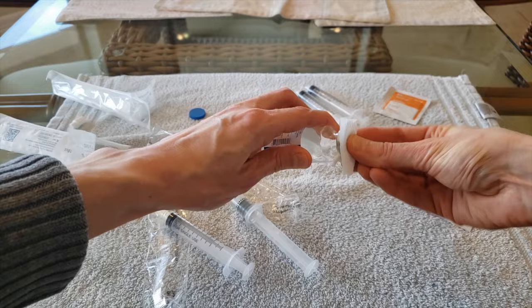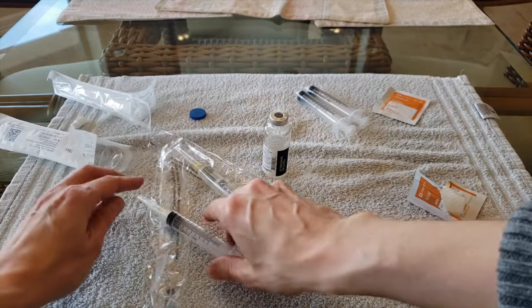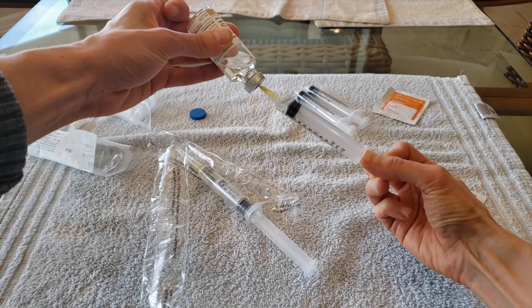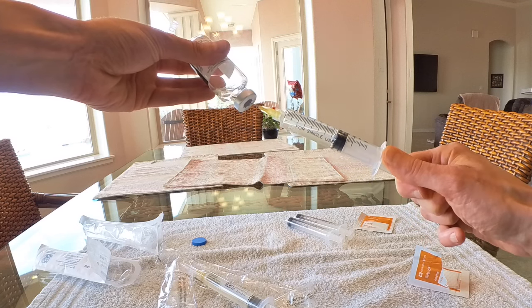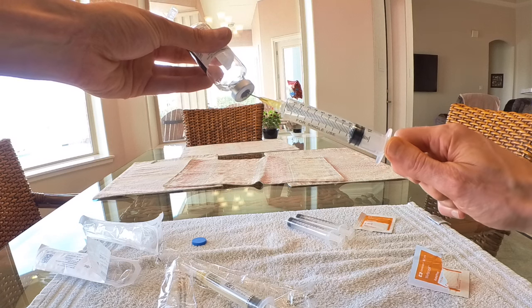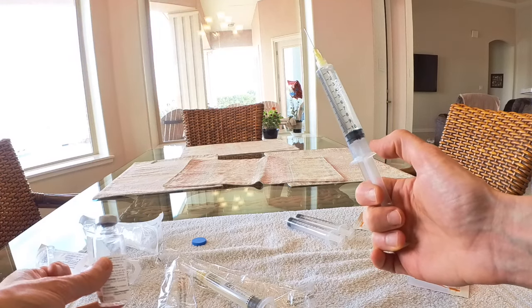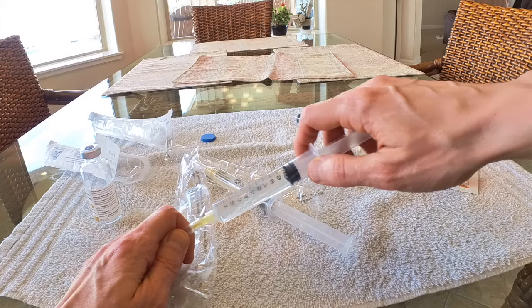Next, I wipe off the top of the vial. I then pick up the other saline flush and remove the cap from the needle. I pick up the vial and flip it upside down. It is important to insert the needle on an angle to be able to get all the liquid out of the vial. I then pull back on the syringe, and as the liquid enters the syringe, I carefully begin pulling the needle out of the vial to keep the end of the needle in the liquid. I place the end of the needle at the very bottom corner of the vial to get as much of the liquid medicine out as possible. Once as much liquid as possible is in the syringe, I withdraw the syringe from the vial. Carefully, I advance the syringe plunger to push out any air which may be in the syringe. Once all the air is out, I place the cap back on the needle and set down the syringe.